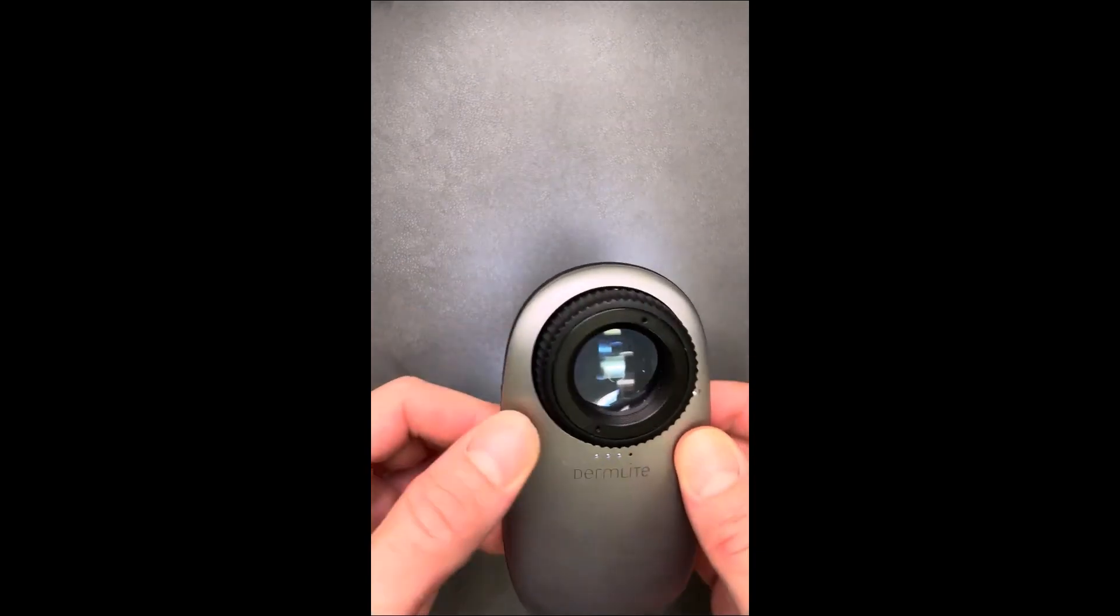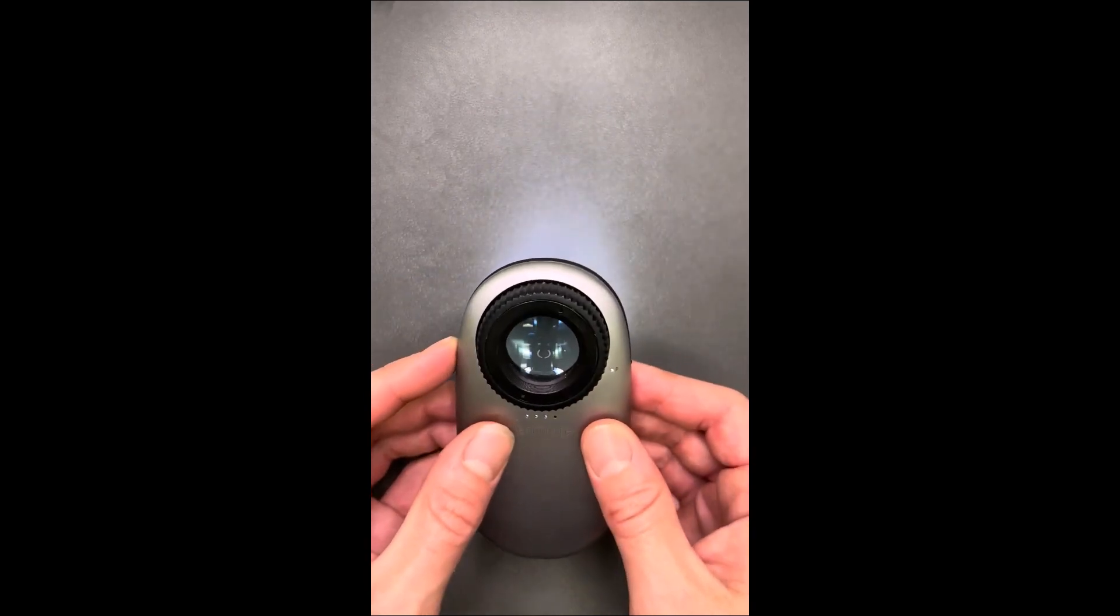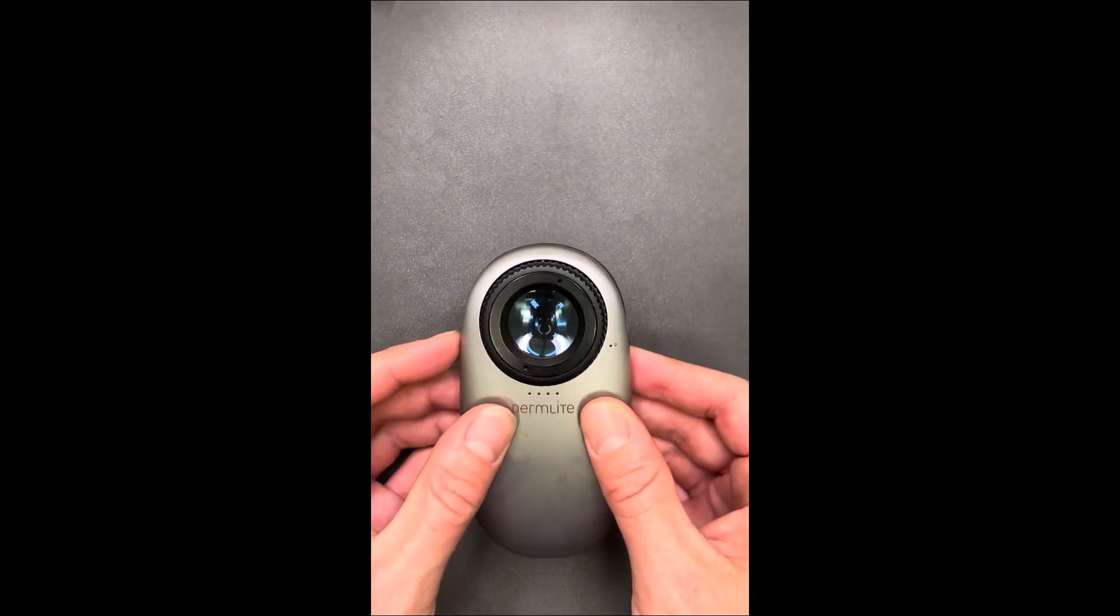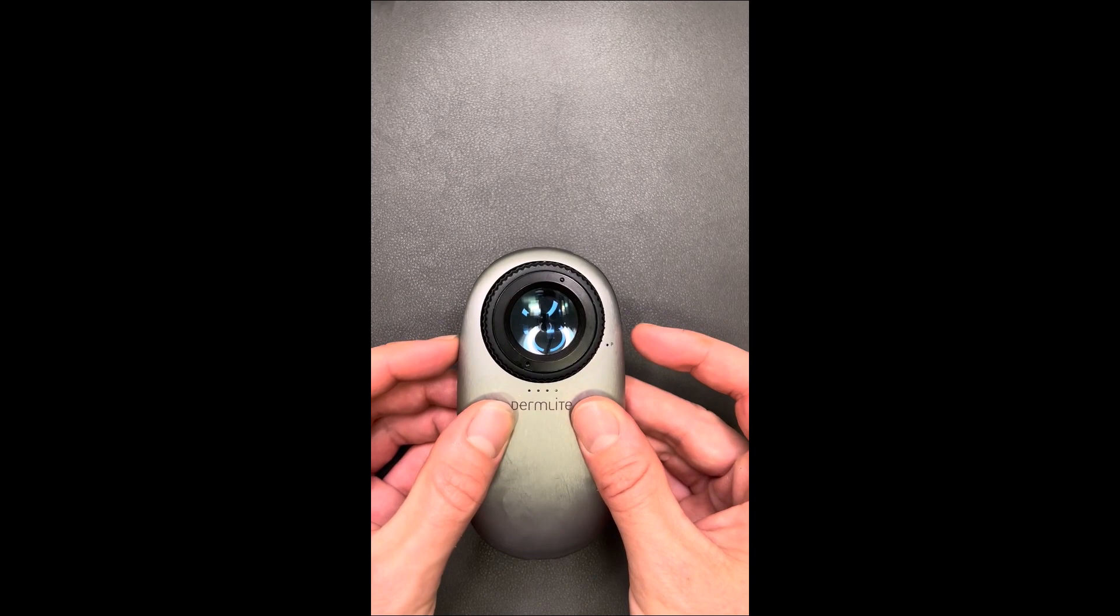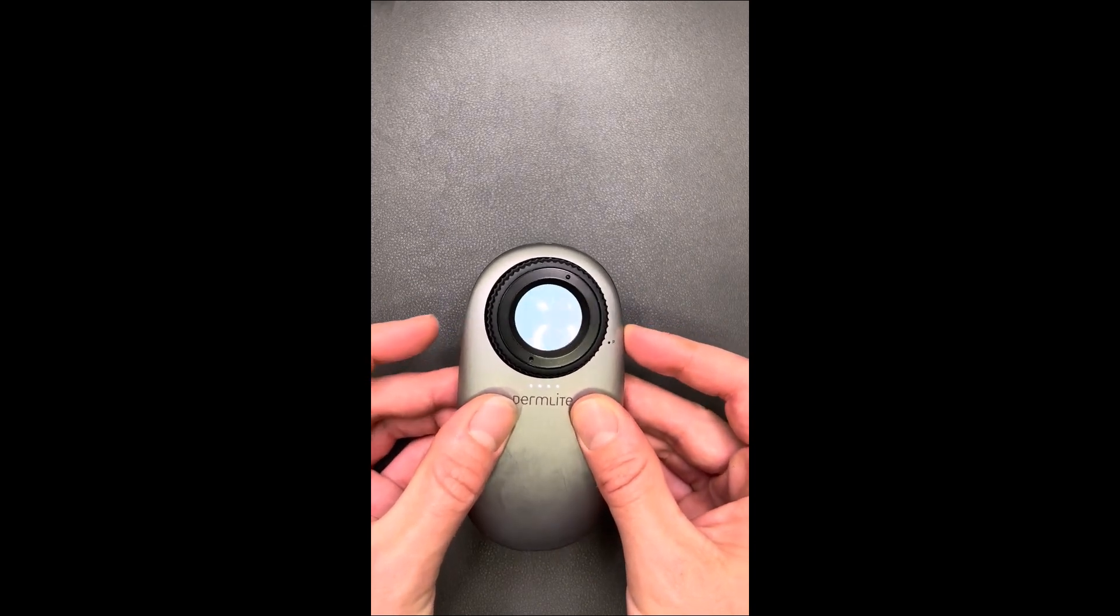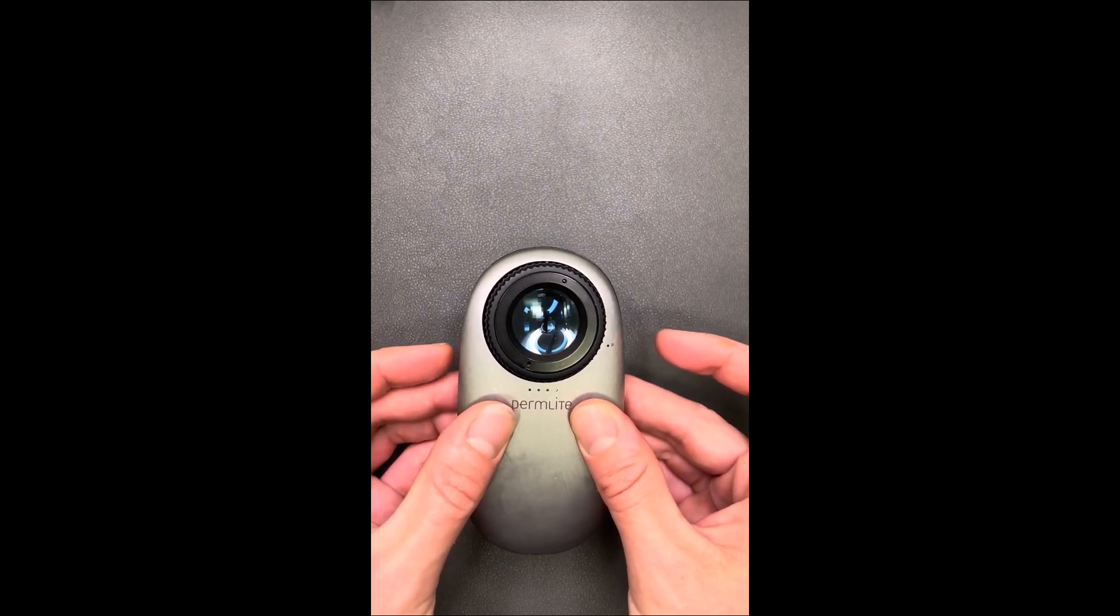Once you're finished, just do a quick check to be sure the buttons still work as expected. If the buttons feel tight, remove the cover and inspect everything, being sure that nothing appears pinched or out of place before reinstalling as described.